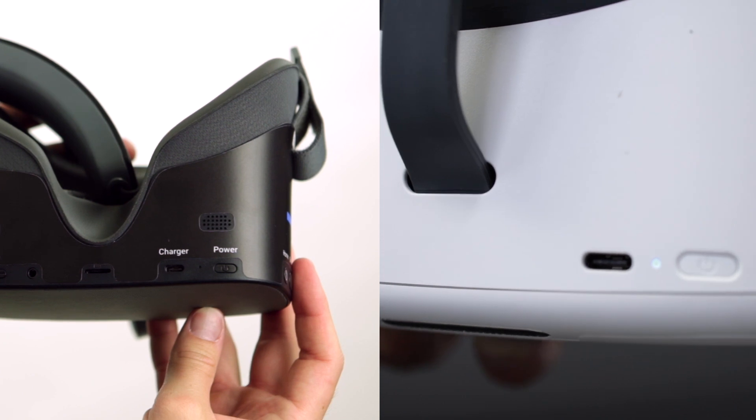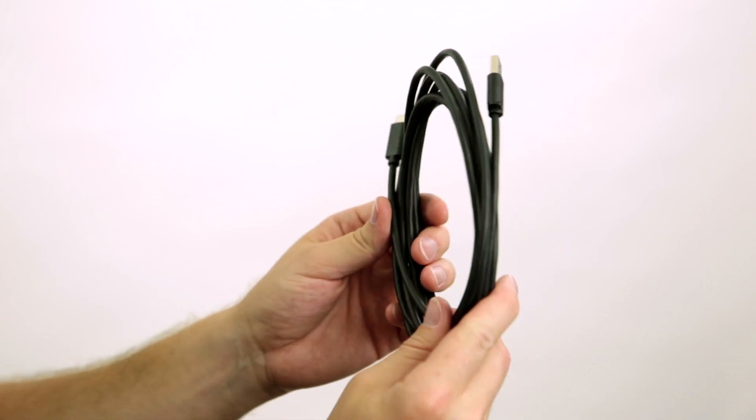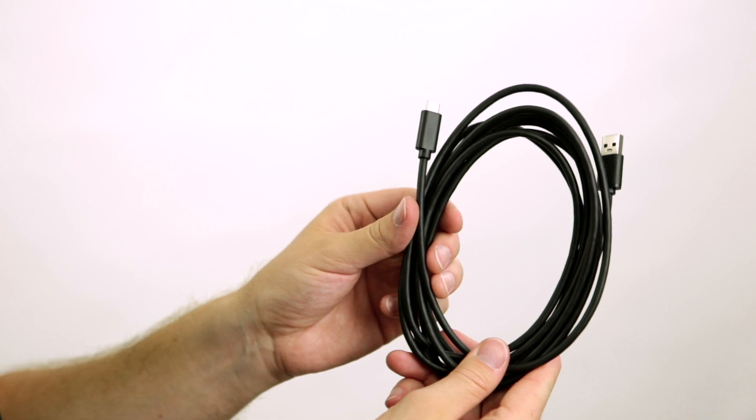This ensures that your device will charge as fast as possible. Third, you should also charge your device in between exams. In the rare case that you are running so many tests that charging overnight and in between tests is not enough, you can also use the included 10-foot cable to charge during an exam.